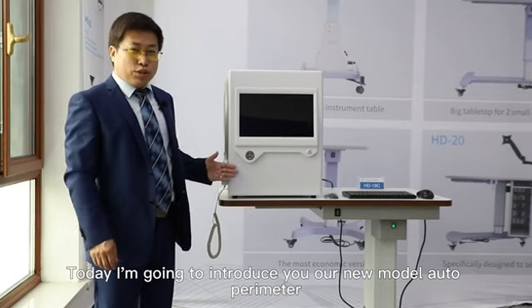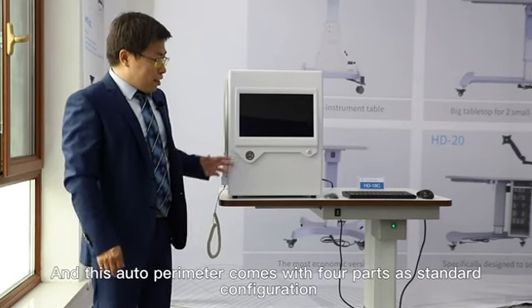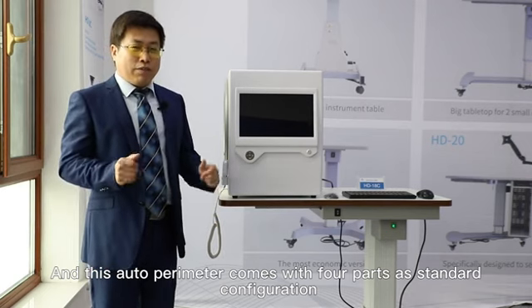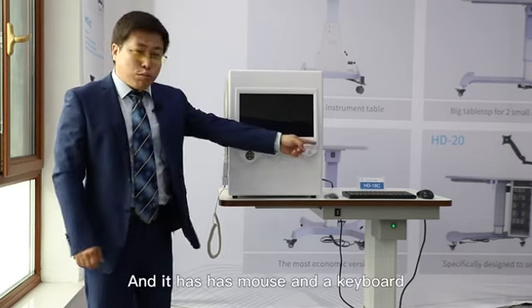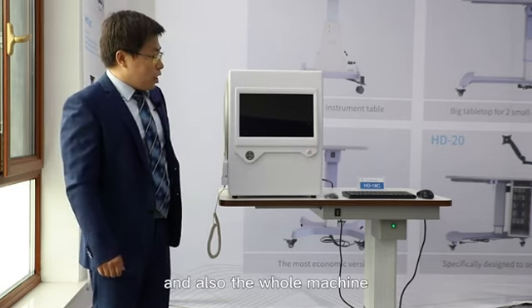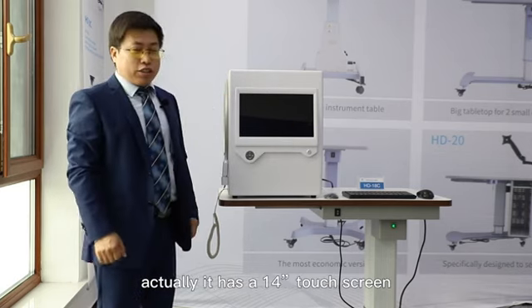Today I'm going to introduce you to our new model, the auto perimeter. This auto perimeter comes with 4 parts as standard configuration: a mouse and a keyboard, an eye patch, and also the main machine. And as you can see, it has a 14-inch touch screen.